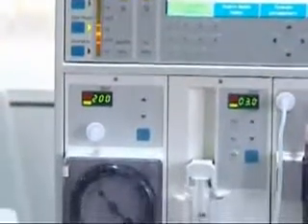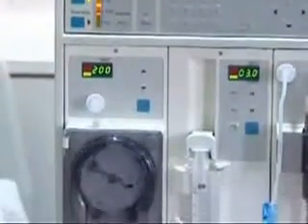Our body has 5 liters of blood. This machine cleans this blood 15 times. In this cleaning process, the waste and damage products in the body are removed. This is why we call this the artificial kidney, because the waste removal function is performed by the machine.